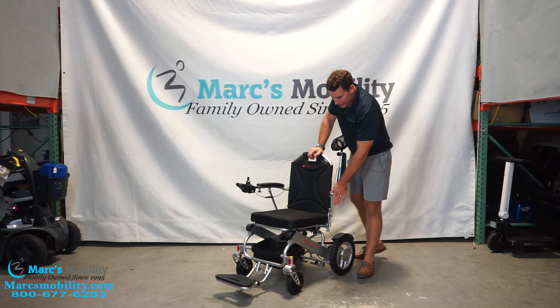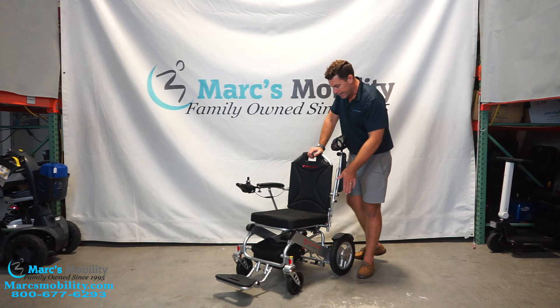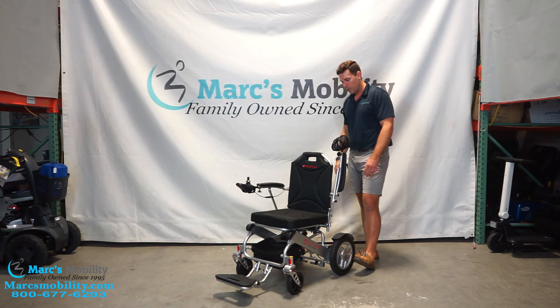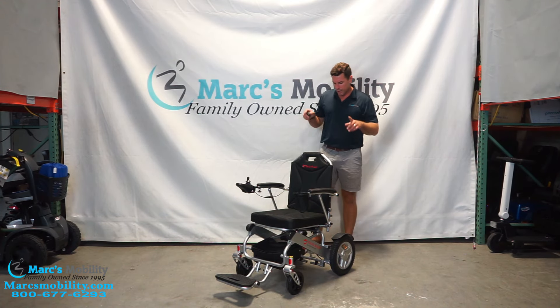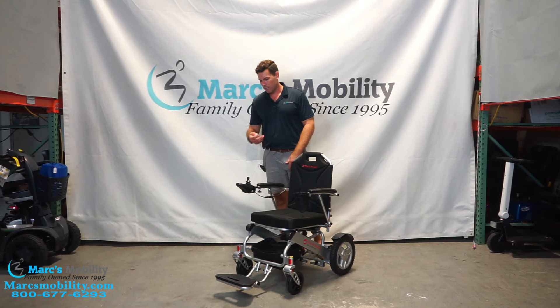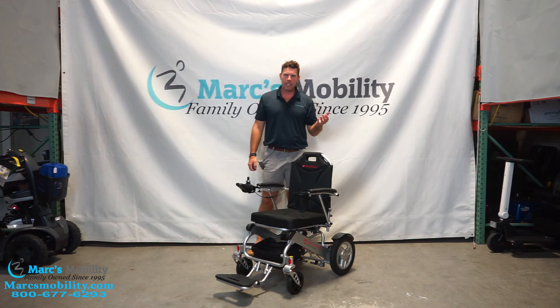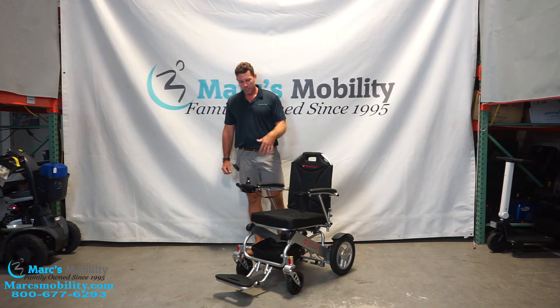What's also great about the metal piston is it sits flush with the backrest. So if you need to slide transfer in or out from either side, you can do that without any obstruction. A lot of folding chairs have a plastic piece right here that hits into your back when transferring, but with the metal piston under the arm you don't have to worry about that. Travel Buggy also has a 90-day wear and tear warranty — which covers your armrests, tires, and other things that might happen to the unit in the first 90 days.